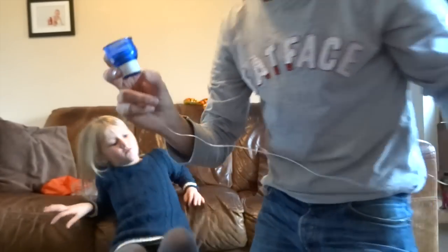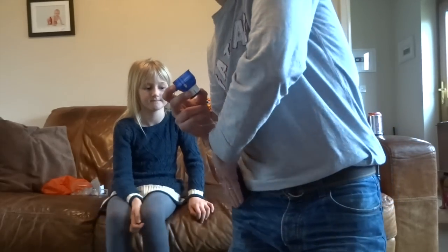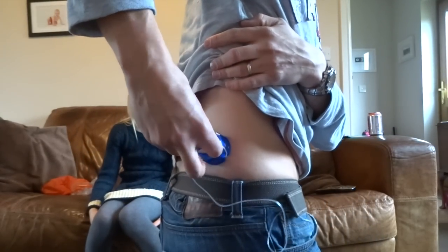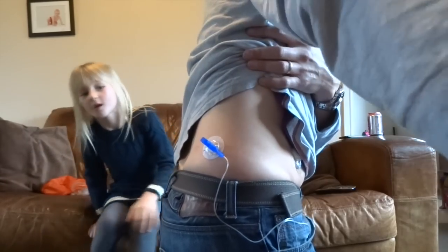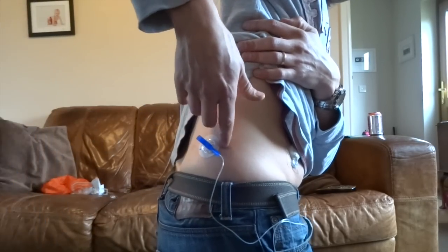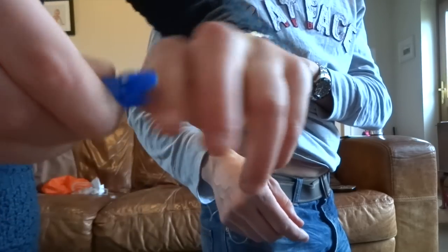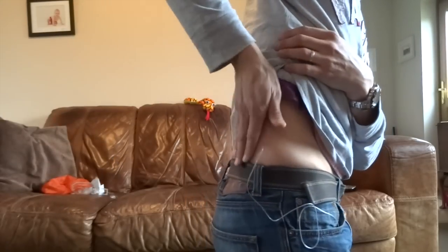So we'll let go of the pump, put it in your pocket — makes it easier. We spin around, we find somewhere to put it on the body. For me, I like going around the back, somewhere not used recently. So we found somewhere to put it. Let's press the buttons — in it goes. Take it off. No pain at all on that one. I'll hold it. I'll just push the tape down. Take off that — show the camera — you take off that, and then you fold it in so nobody gets hurt, because the sharp's now inside there.